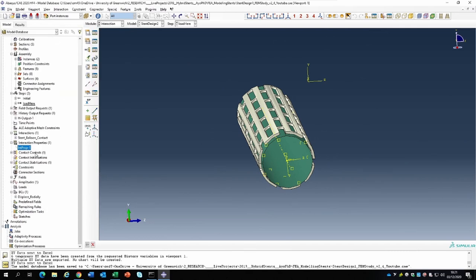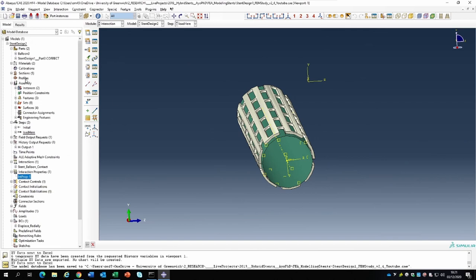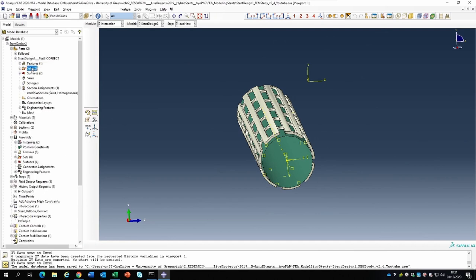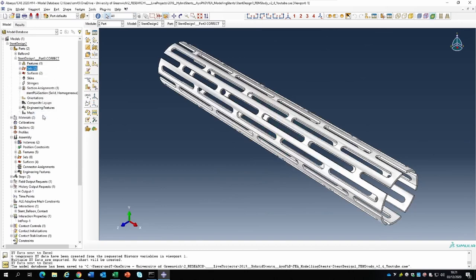Before we make the submission, there are a few things we didn't do in the previous video which I'm going to start with now. In the parts module for the stent design, we need to create a set of reference points to use for extracting and analyzing how the structure is going to behave - structural parameters like elastic recoil, longitudinal retraction, foreshortening, and dog boning. These are features used in characterizing stents.